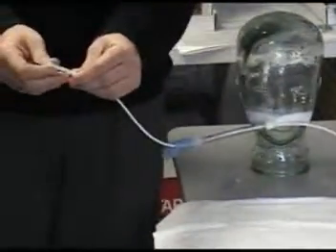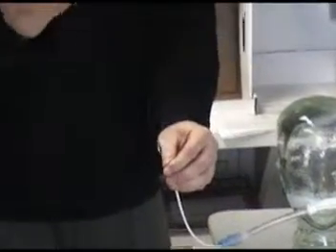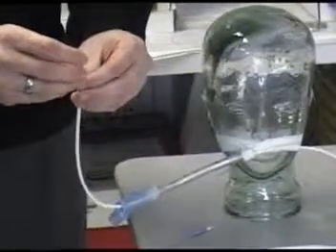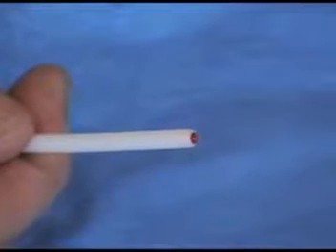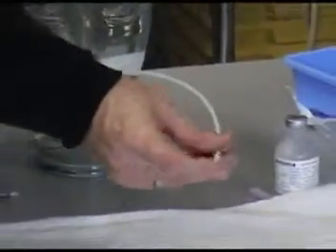Now what we're going to do here is we've retracted our catheter 2 to 3 centimeters. Go ahead and remove this spacer. This spacer is what keeps the inner lumen of the catheter from popping out that plug prematurely. This is now discarded, and now you will gently push down and advance that catheter. Give this a quarter turn here to lock it up here at the luer lock, and now you've advanced the inner lumen of the catheter, and you've got a sterile tip on the catheter that's never touched anything but the lower airway.